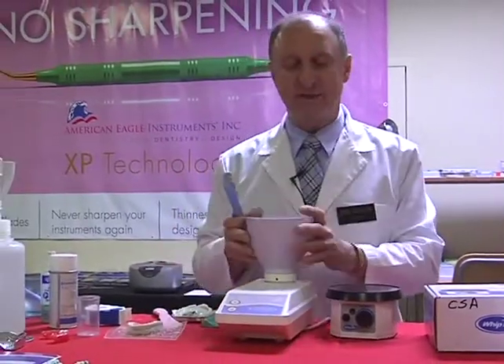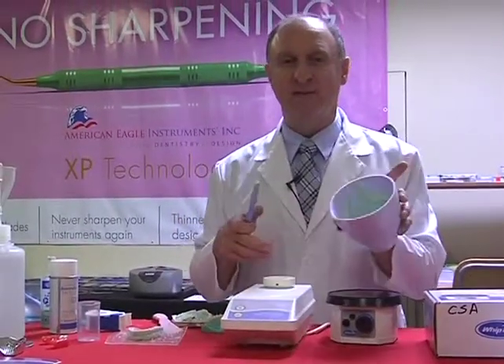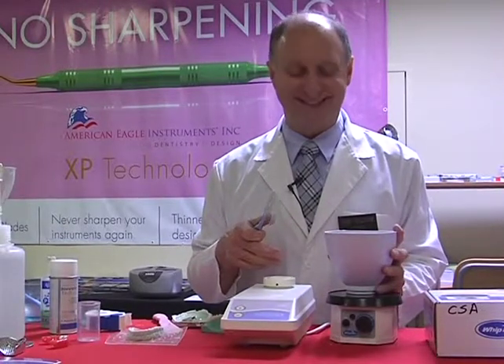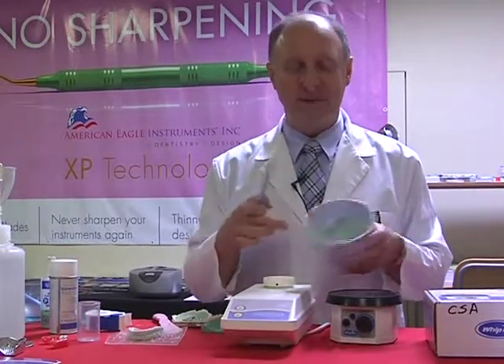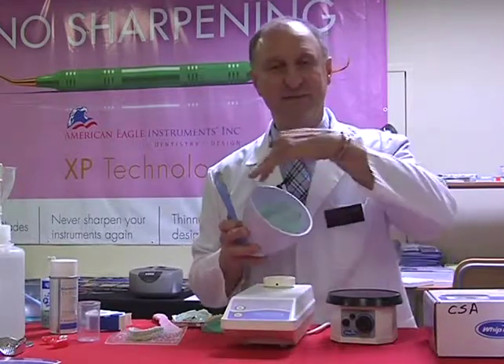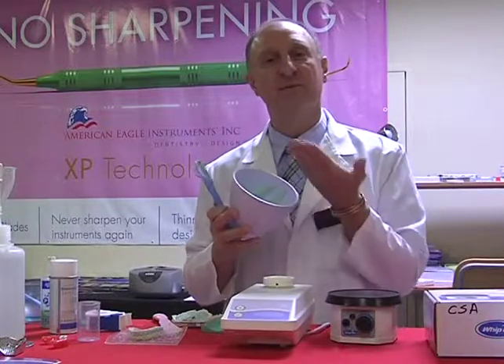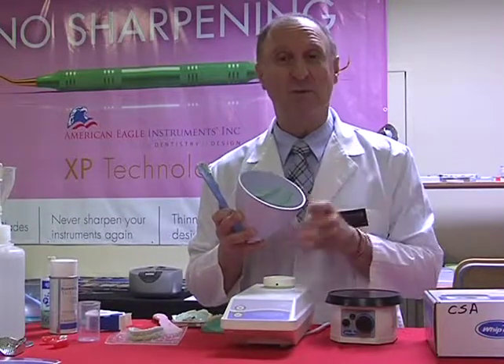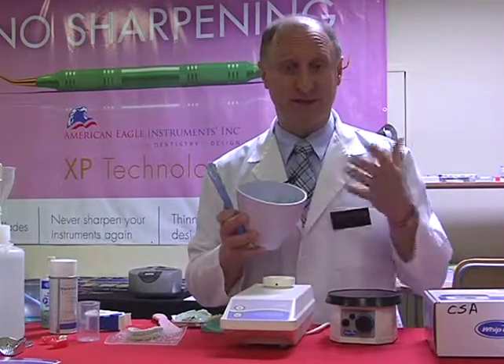One of the worst things that you can do is taking your bowl with mix on top of the vibrator, and I see every office doing this. They watch all the little bubbles come from the surface, but what it's going to do is actually take more air from around the surface of the bowl, put it back through the mix, and so you're actually aerating the mix, which is really what we don't want to do. We want to try and squeeze all the air out.